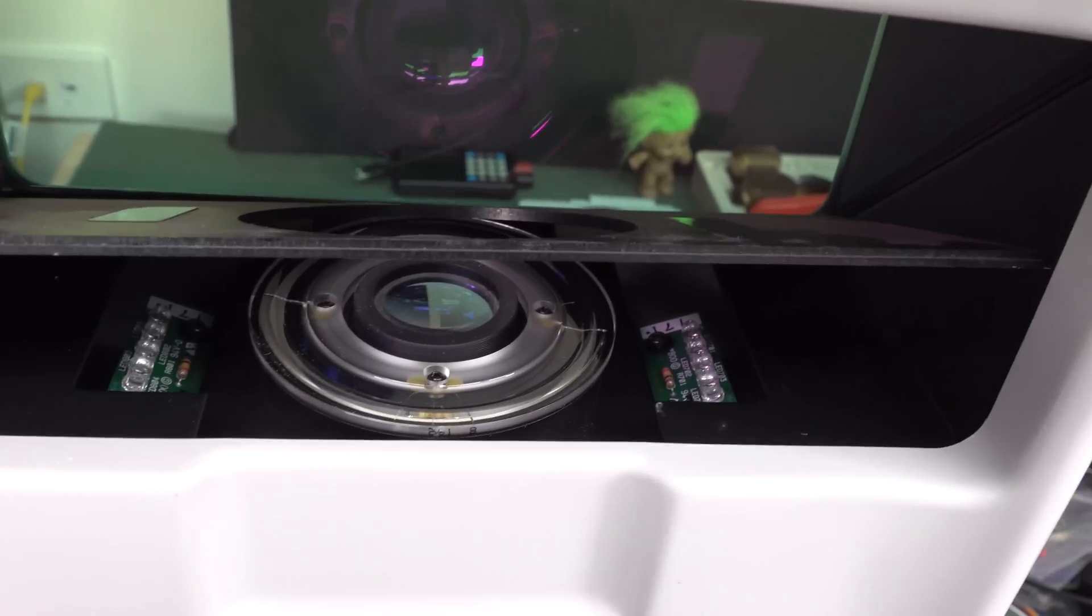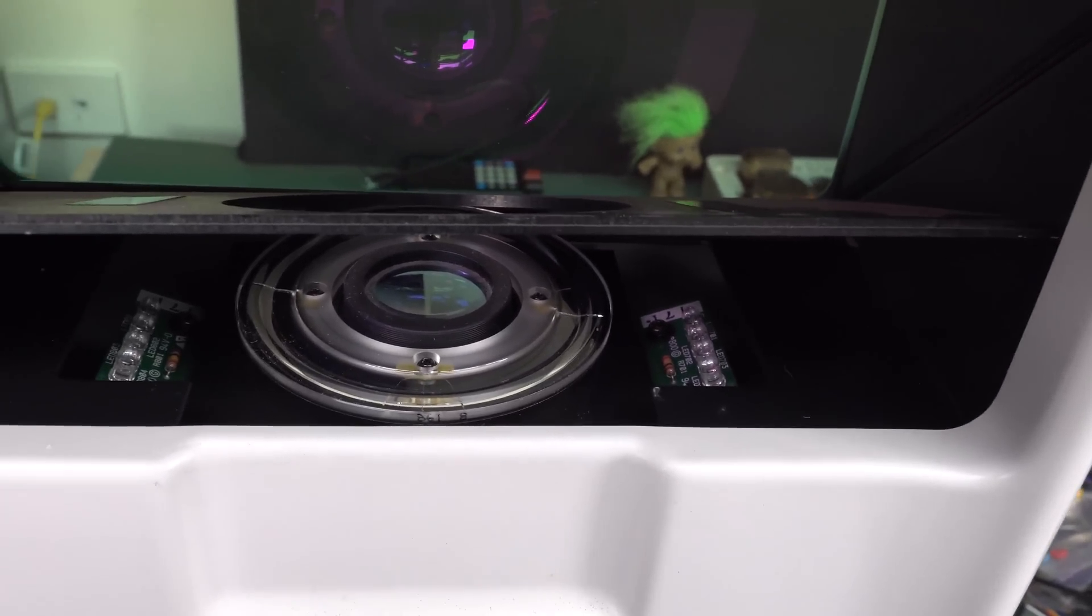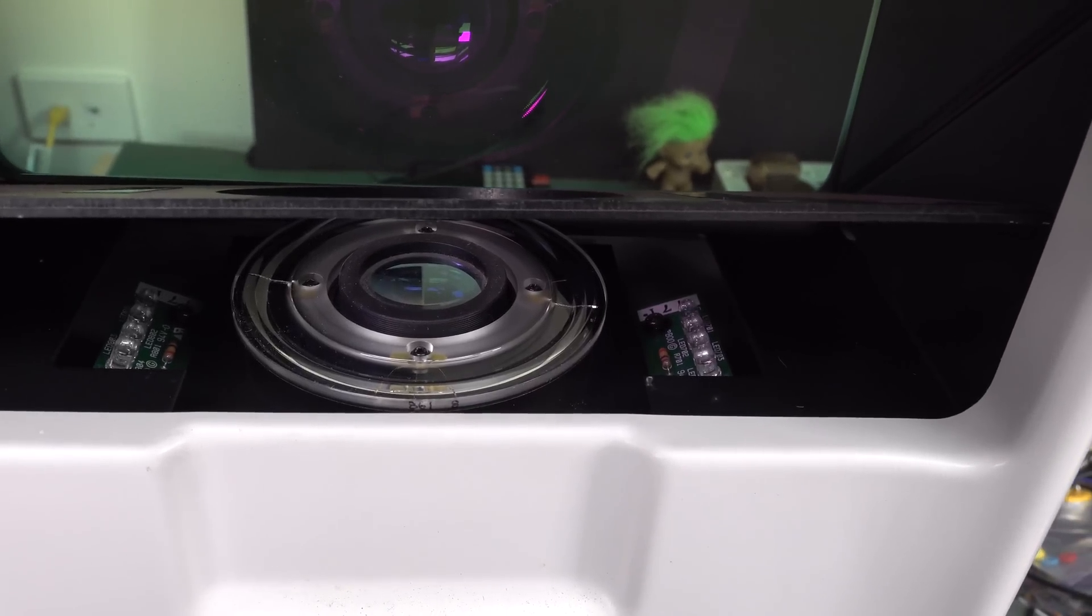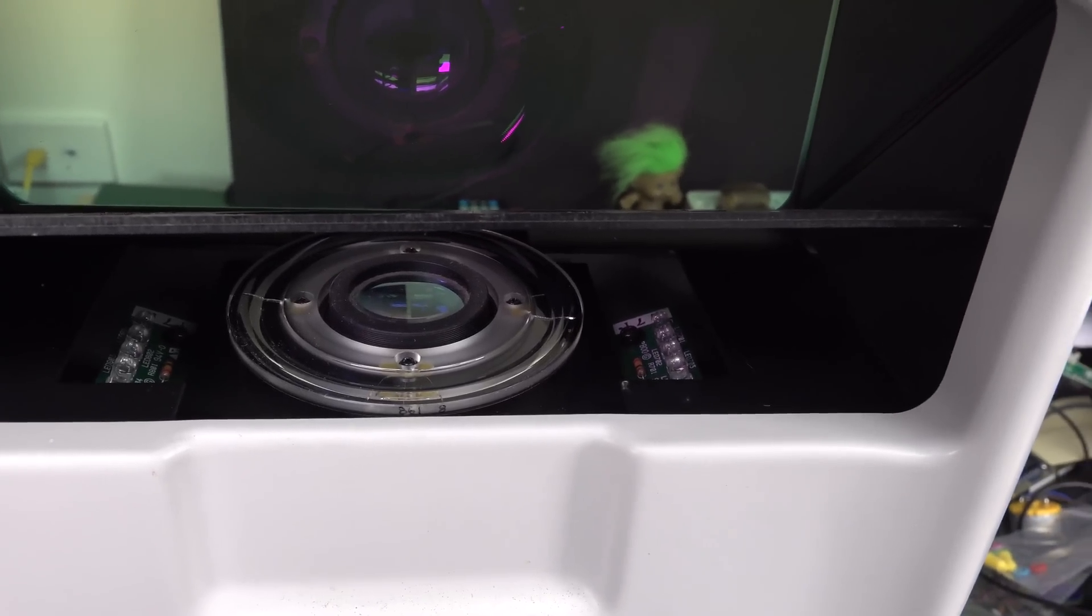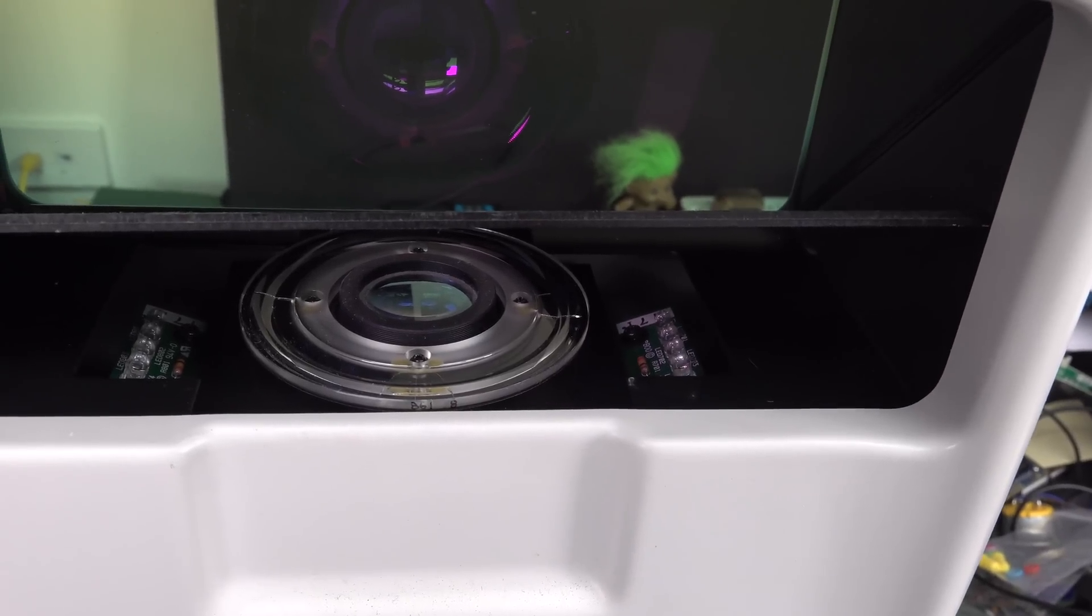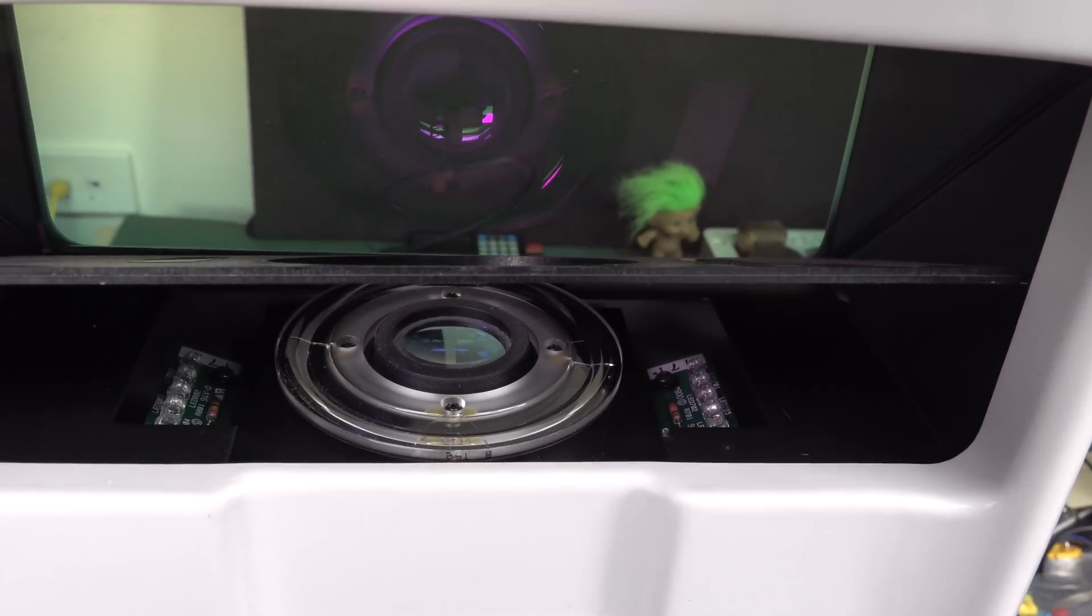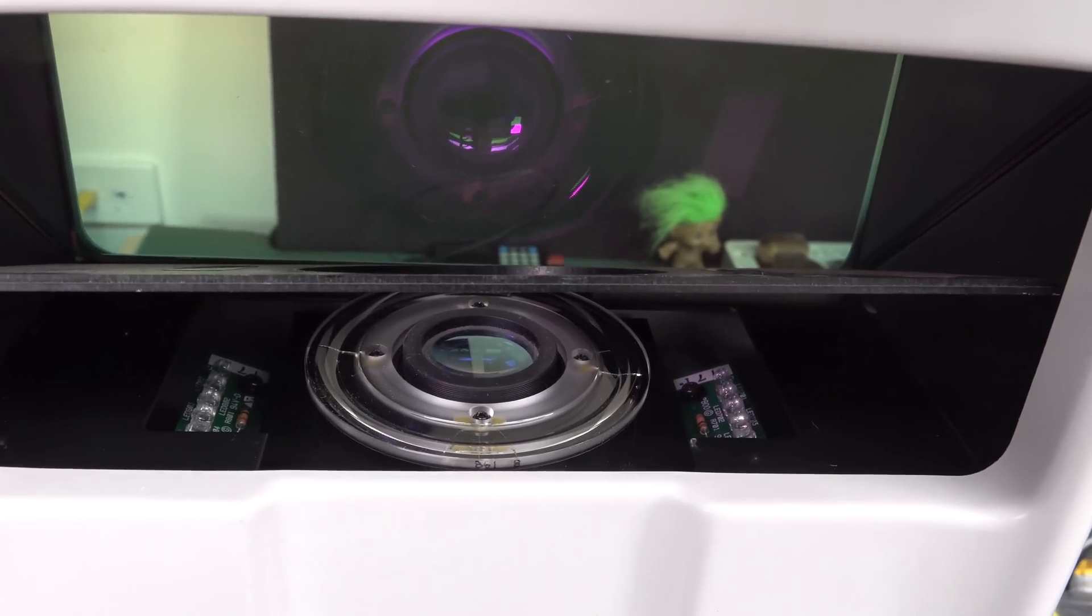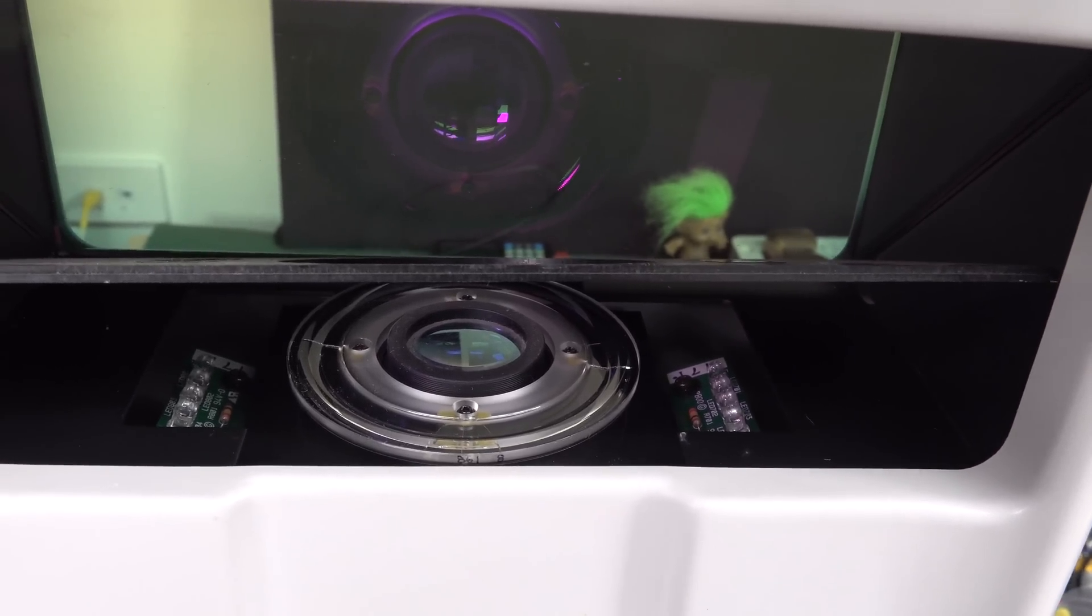Well, there you have it. Those side windows were the infrared LEDs. Four on each side there, angled. So they point to the point on the 45 degree reflector screen that would then go into the eyes. I thought they might have done that deeper down in the lens system. But nope, just on the top there. No worries. So they're not continuously on. They would pulse those as long and as hard as required.